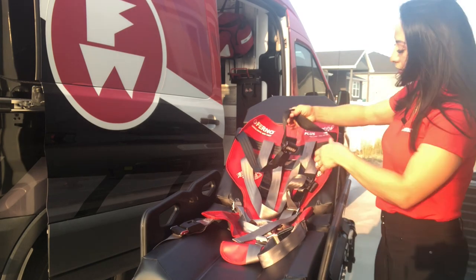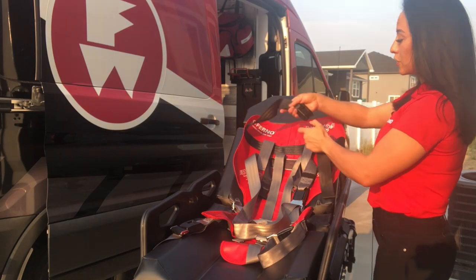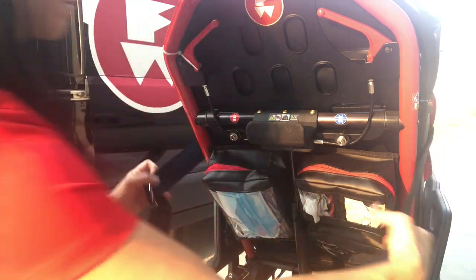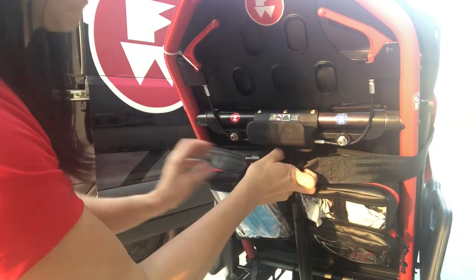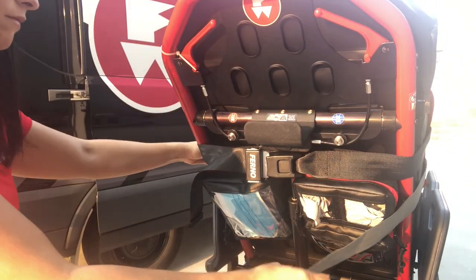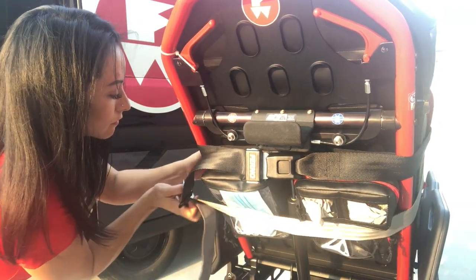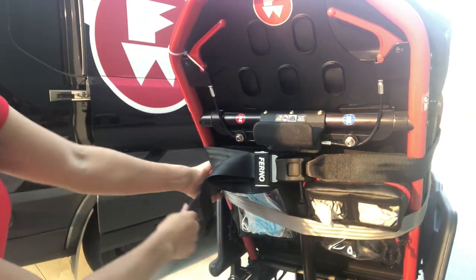Once you've done that, you'll notice there's a black strap and then there's a large gray strap. You'll go ahead and remove this, wrap it around your gurney, and secure it in place. Now you have your neck strap here — you're going to do the same with this. Wrap it around the gurney and if you need to loosen it to adjust it, do that. If you need to tighten it at the end, go ahead and do that.